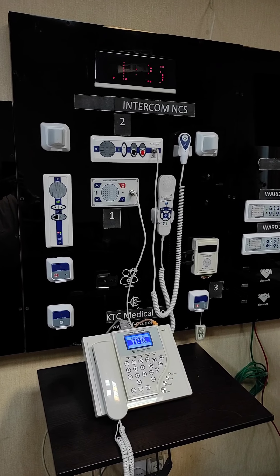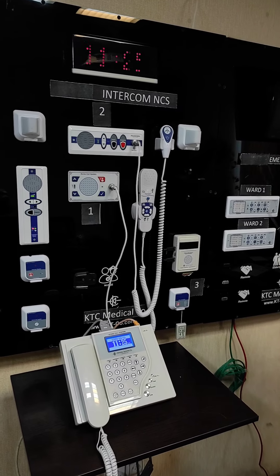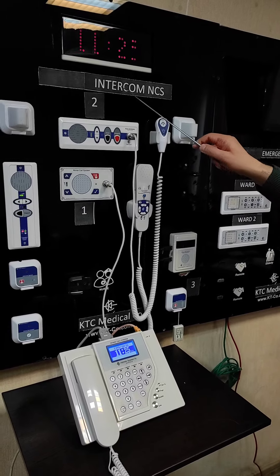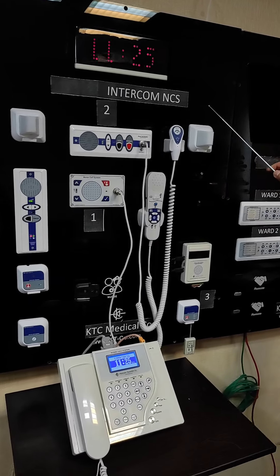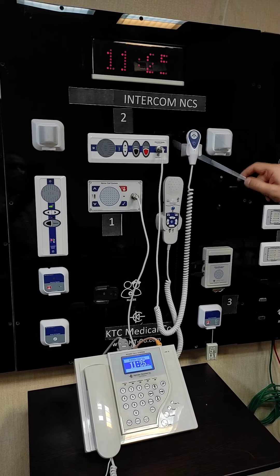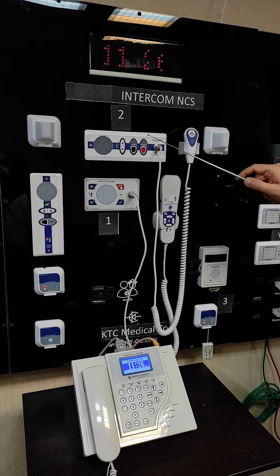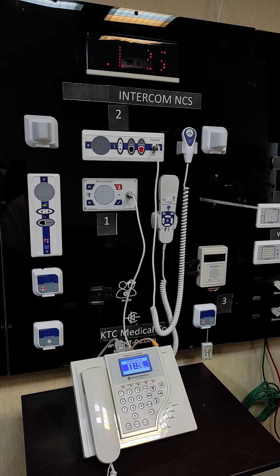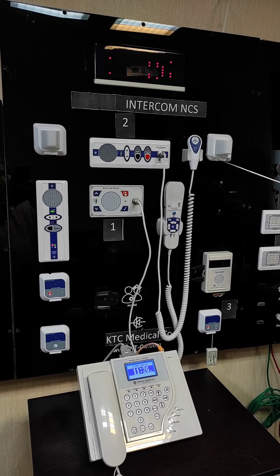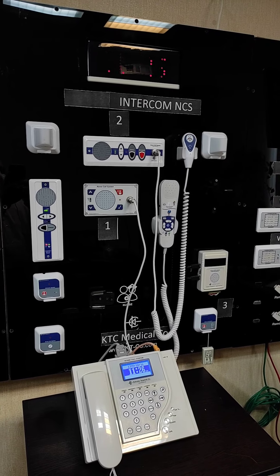Hello everybody. Today we want to give you a small presentation on KTC Medical Company Intercom Nurse Call System. As the name suggests, this type of nurse call system uses a two-way full duplex voice communication between the patient and the staff.